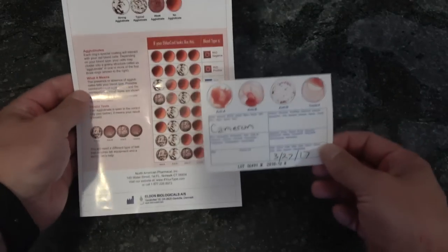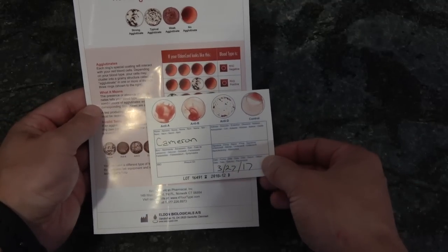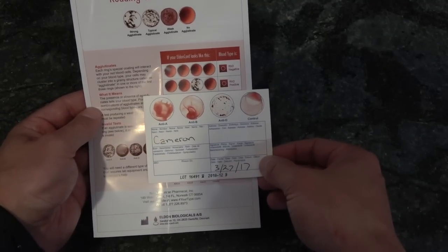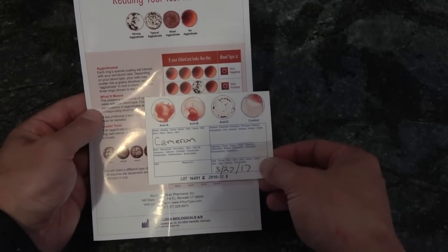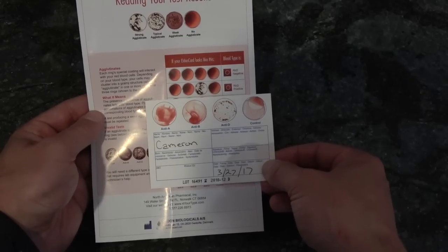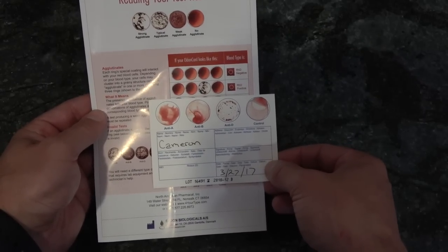Very nice. And when you look at the included chart, right there I am. O positive. It took less than ten minutes for me to get that result, and it's as accurate as you're going to get in the hospital. Even though I was hugging a camera, that was even easier than I was expecting. It took about six minutes to follow all the steps and I got a result that's as accurate as in the hospital.